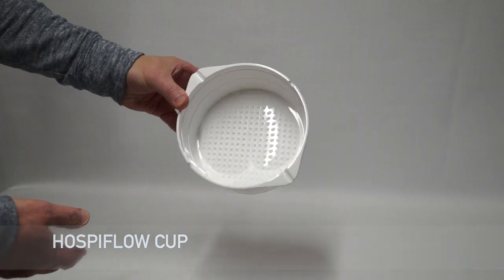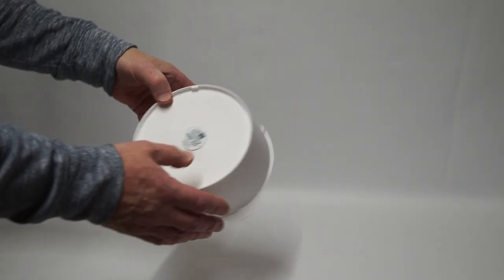On the base of the cup is a unique identifier which will link urine measurement directly to a patient.